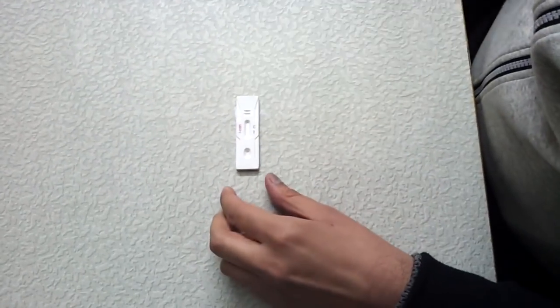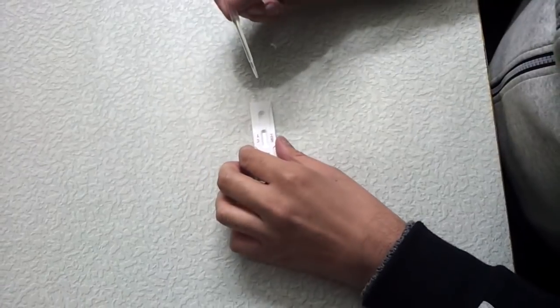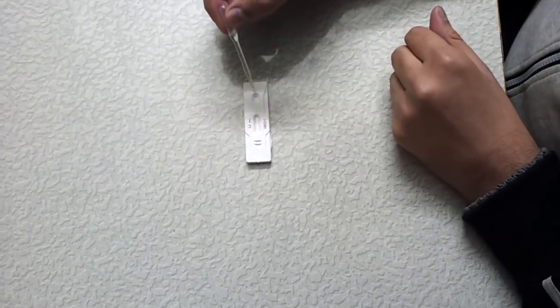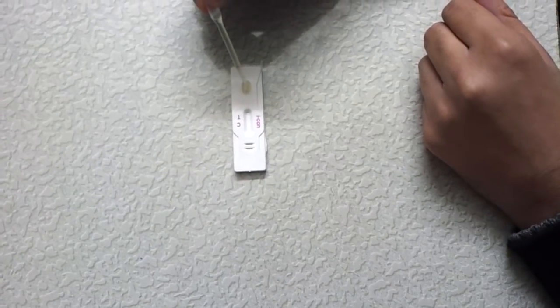Let me take three drops of urine. So let's put three drops, let me do it, in this area: one, two, and three.